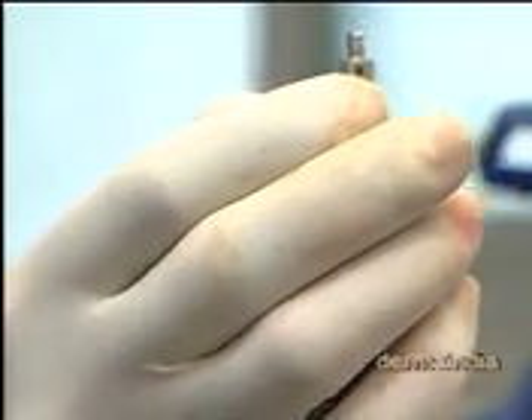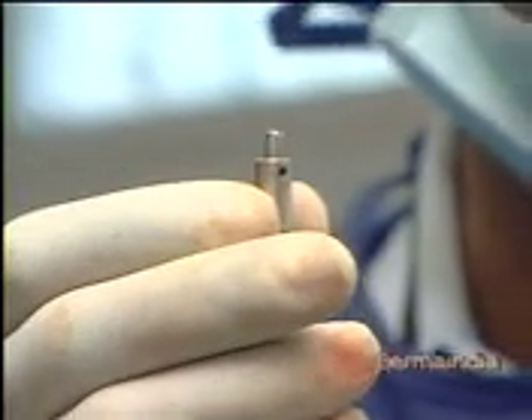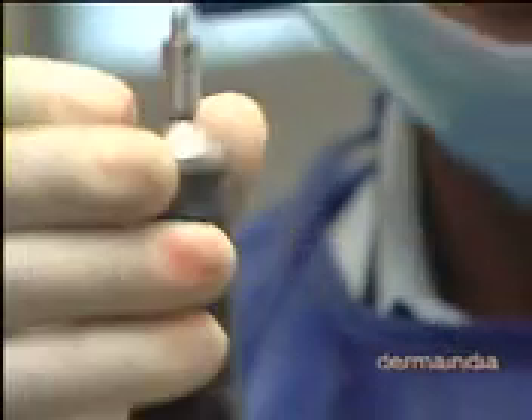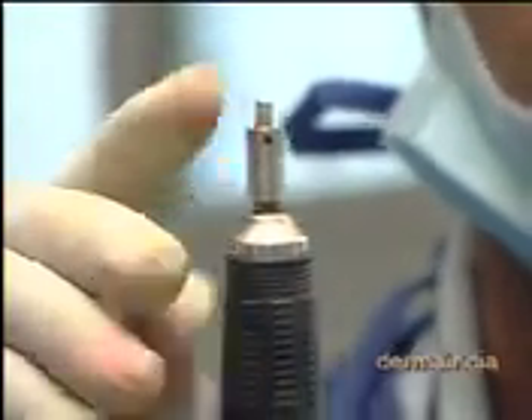This one punch is around 8000 rupees. This is very nice. This will go for around maybe 10 to 15 surgeries. So beyond that you can't go. This is the length which has to be used.